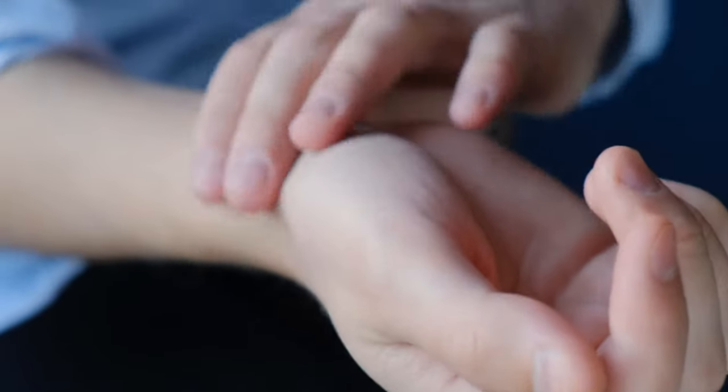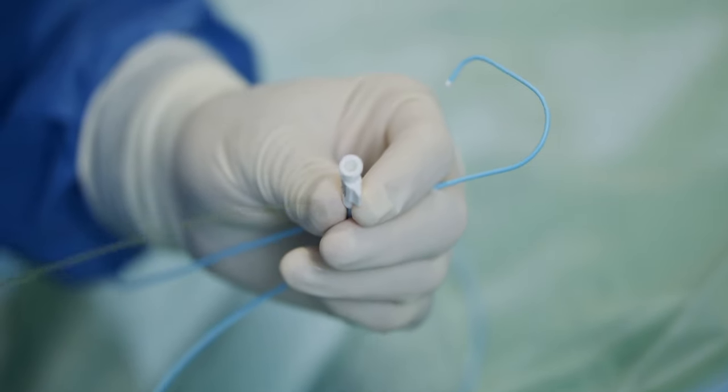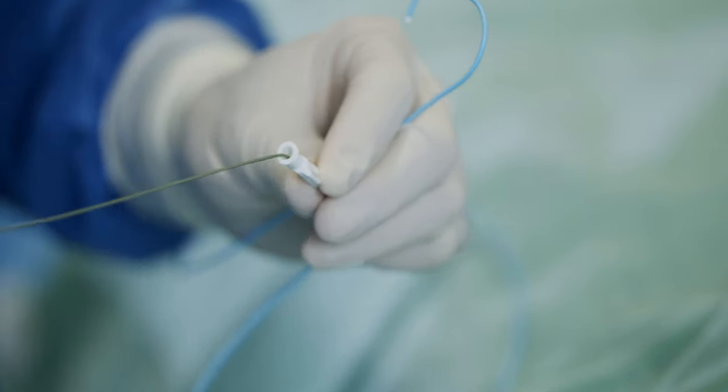A question that I often get asked is, how do you go from here to the heart arteries here? Well, we use a catheter, and this catheter is usually one metre long. That catheter is advanced from the wrist artery all the way through our arm artery and the aorta and curves around. You can see it has a pre-configured tip. There are different shapes in these catheters that can all fit the coronary arteries. This one here fits the left side of the coronary arteries and has a tip — it's a hollow catheter whereby contrast is injected, and that allows us to visualise the arteries.